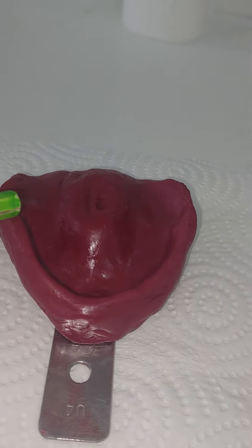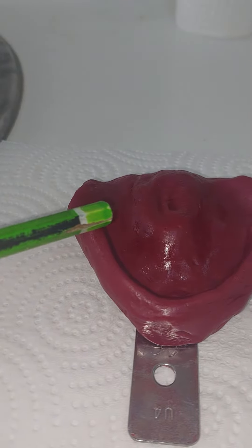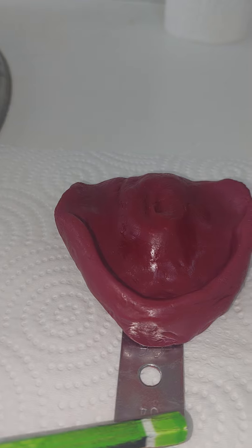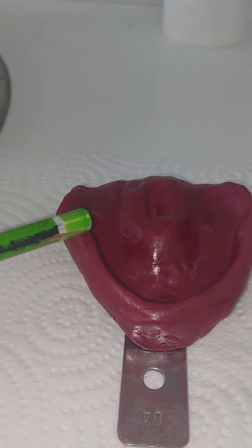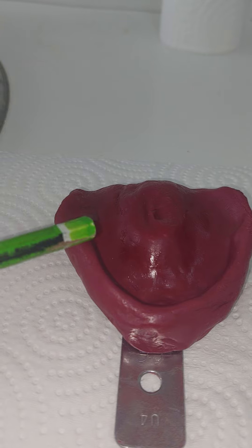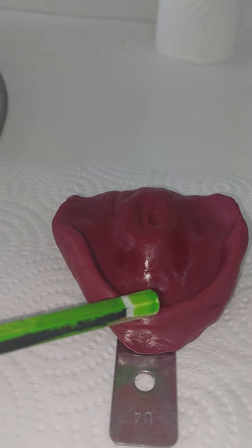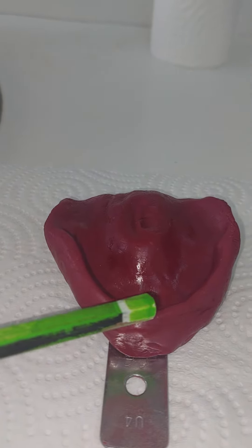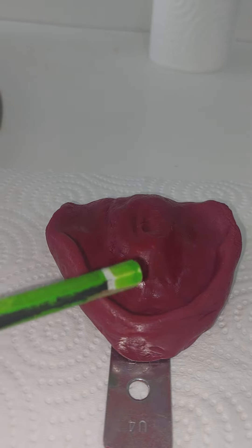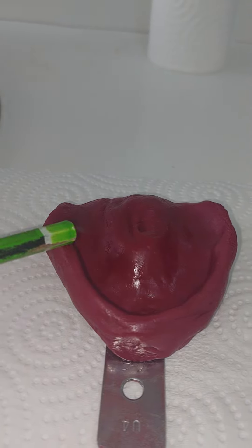Do you think the buccal sulcus around the buccal shelf area is lower or higher than the sulcus in the labial area? The buccal should be lower. Bone attachment — muscles are lower. This sulcus, or this flange, should be higher. The sulcus in the tissue — this is called the flange. The flange of the impression should be higher than this one.